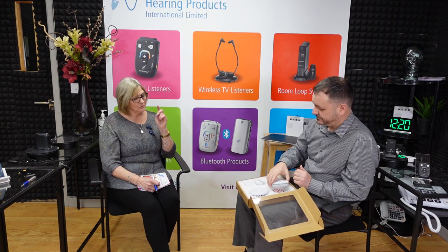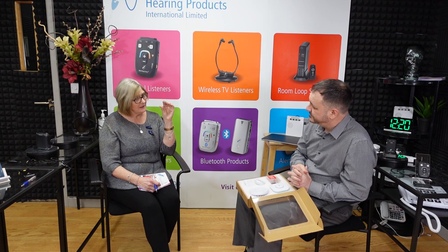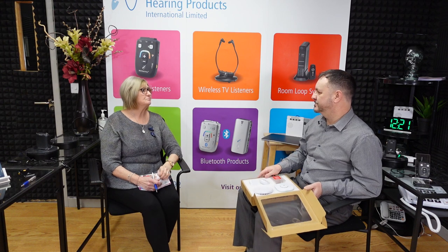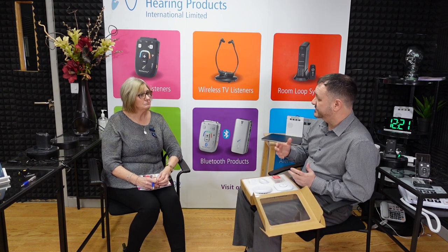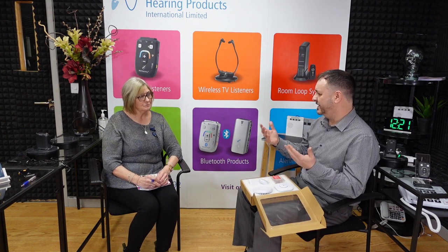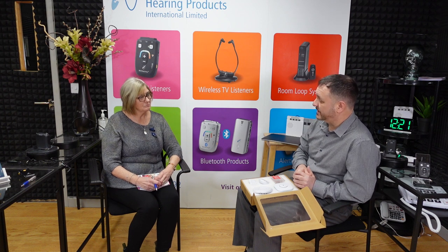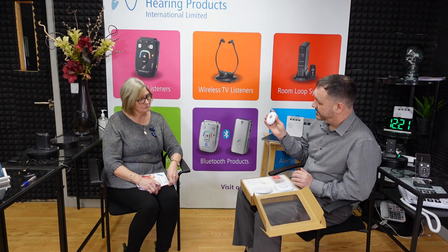Chris has moderate hearing loss, and the alarm tone was quite high-pitched. Can the tone be lowered? No — I understand entirely that someone may find the smoke alarm sound uncomfortable, but that's exactly what they're designed to be. They want to alert you to a serious problem, and it's better to have something uncomfortable for your ears than something tragic. We wouldn't want anyone to alter the sound, as it would be a safety issue. For those who can't hear it, the pager vibrates and flashes to let them know they need to get out.